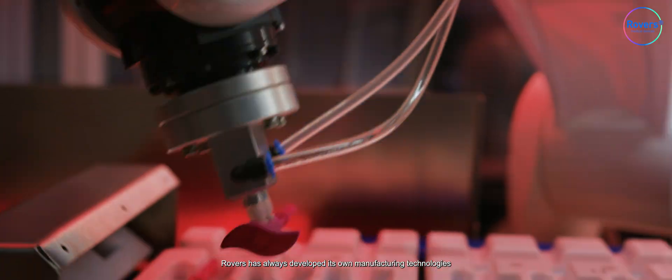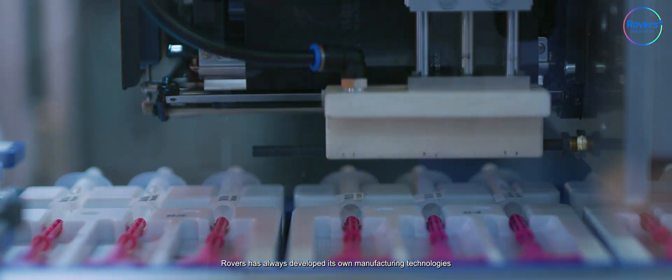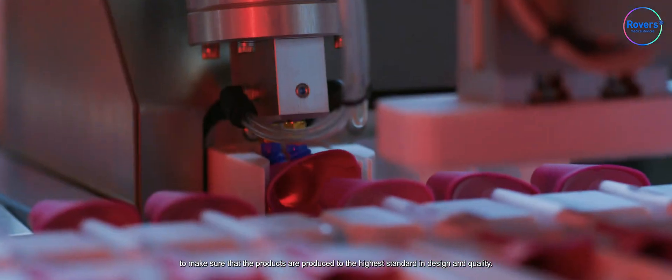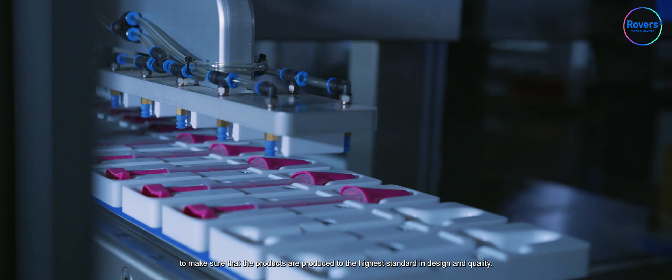Rovers has always developed its own manufacturing technologies to make sure that the products are produced to the highest standard in design and quality.